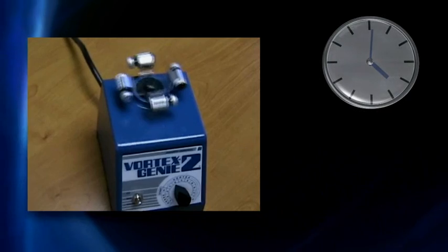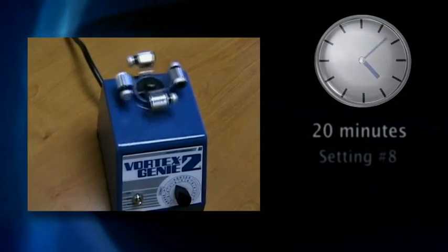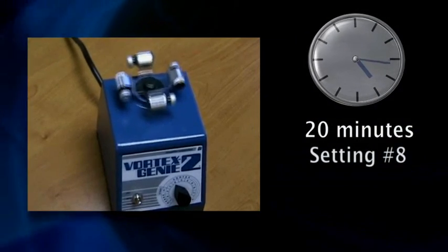Prior to injecting Onyx, load the Onyx mixer with 4 vials of Onyx and shake for at least 20 minutes at a setting of 8. Continue mixing until you are ready to embolize.